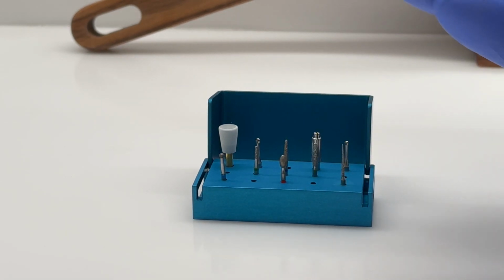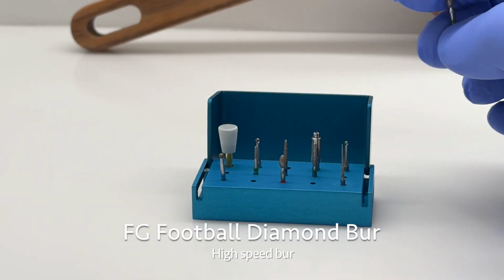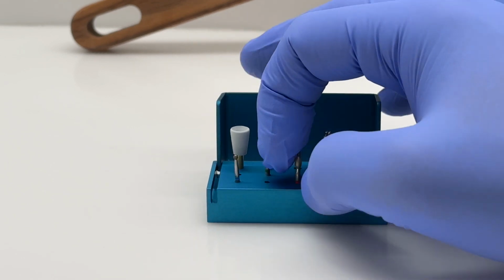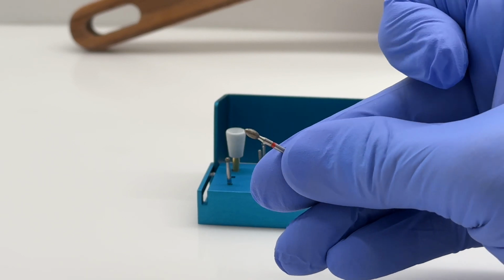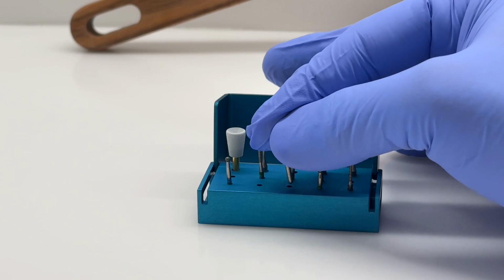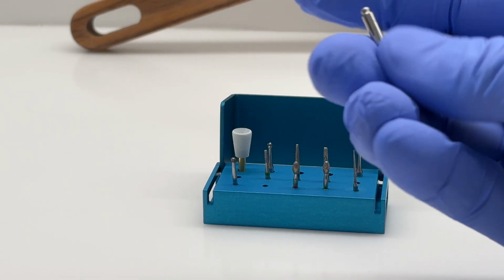Next, we have our football-shaped diamond burrs. These are often used on the occlusal surfaces when you're finishing the restoration. Once the composite resin has been placed, there are different courses. So we have medium and fine and heavy in terms of grit.